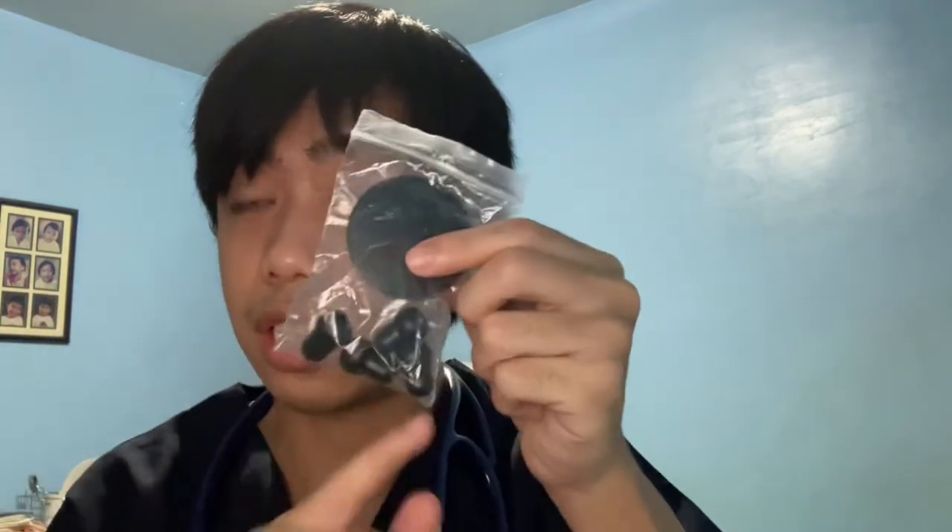So it is a two-in-one: this is the bell and this is the diaphragm. First, it has very soft ear tips and also comes with four extra pairs of spare earbuds. It also has two separate tubings for better listening, unlike conventional stethoscopes. The tubing is also thicker compared to basic stethoscopes, which provides higher-end auscultation — very helpful for students and those in the medical and healthcare field.